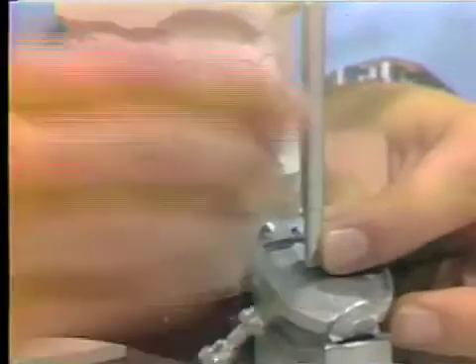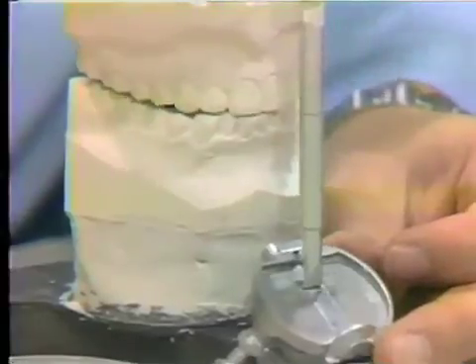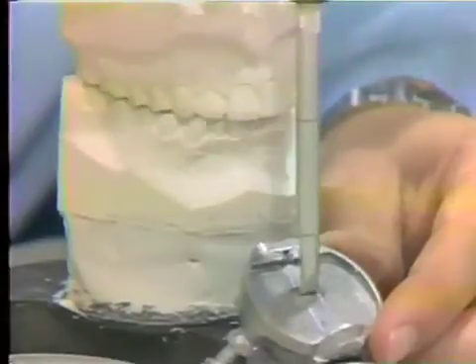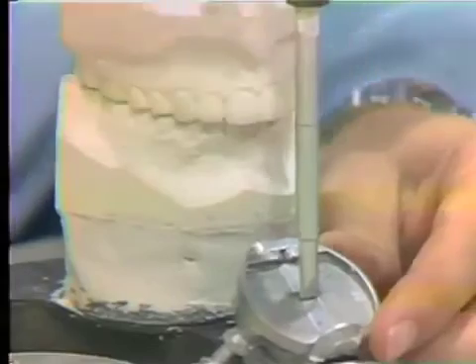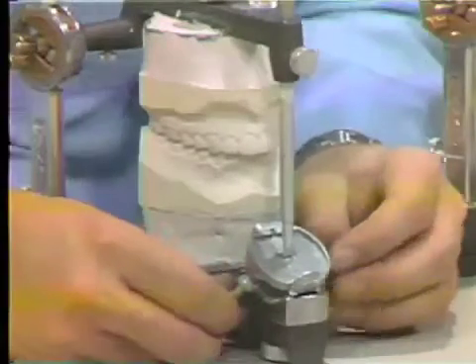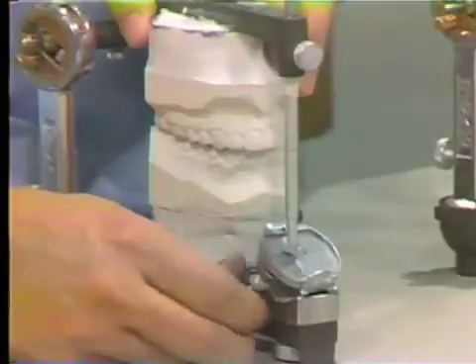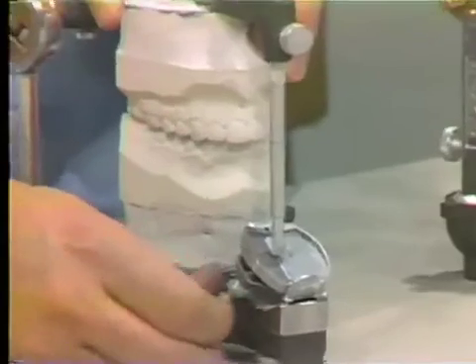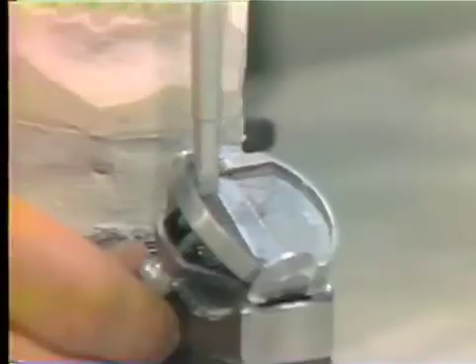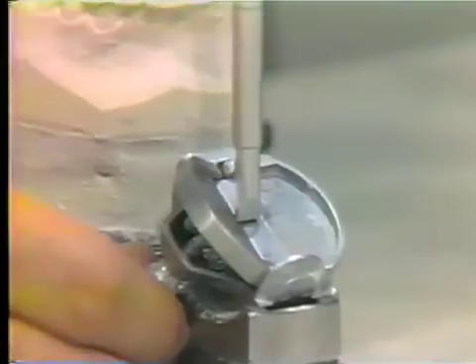If we go into the protrusive excursion and bring the incisal edges into end-to-end relationship, the table can be raised enough to clear the stone teeth and prevent wear. The lateral wings of this incisal table can also be raised enough to duplicate the lateral incisal angle. We can move the articulator without abrading the stone surfaces of the teeth.